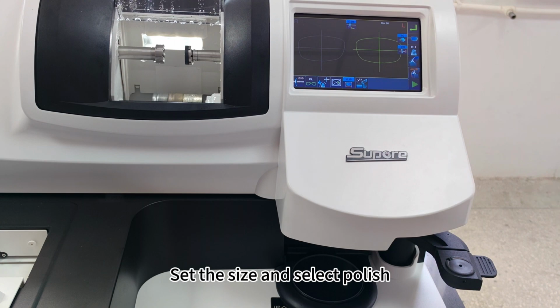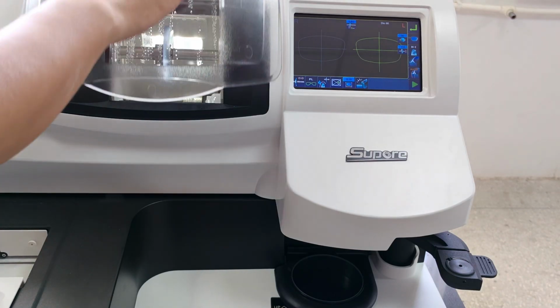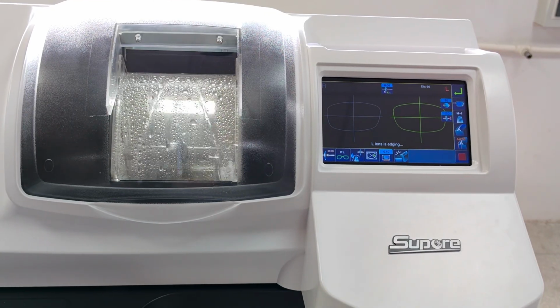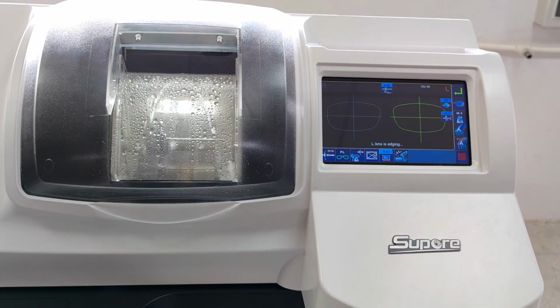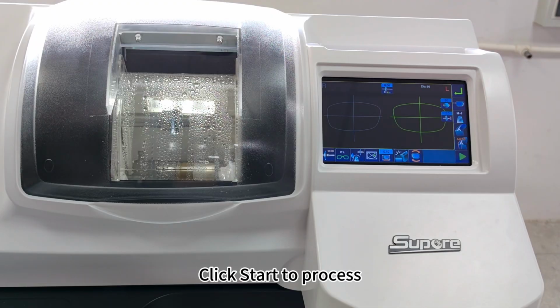Set the size and select polish. Install the lens to the collet. Click Start to process.